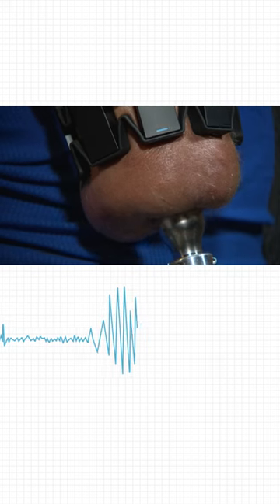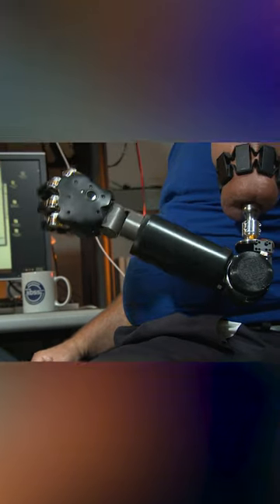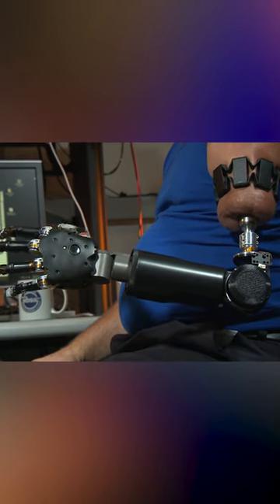So somebody thinks about moving their fingers and what happens is you generate muscle contractions and we can actually pick up those muscle contractions and use that to control a prosthetic device.